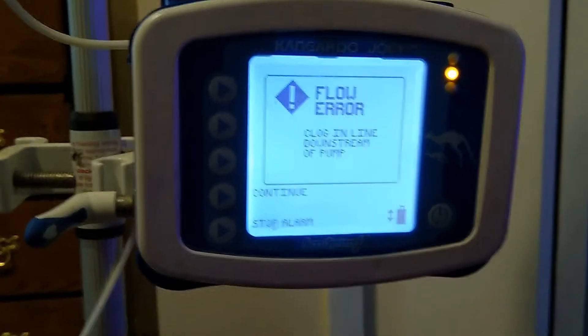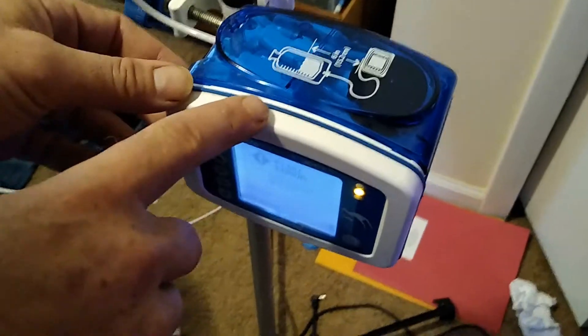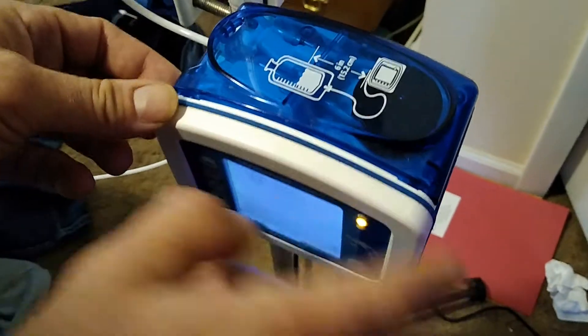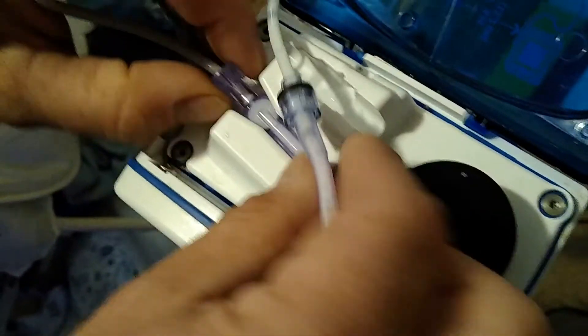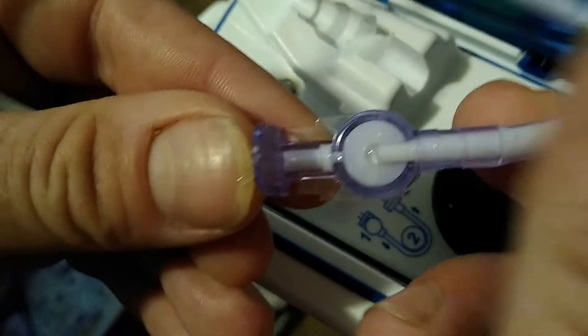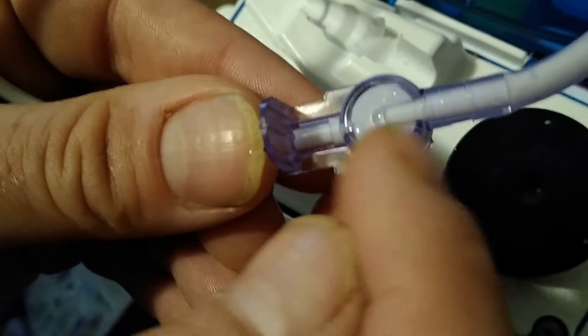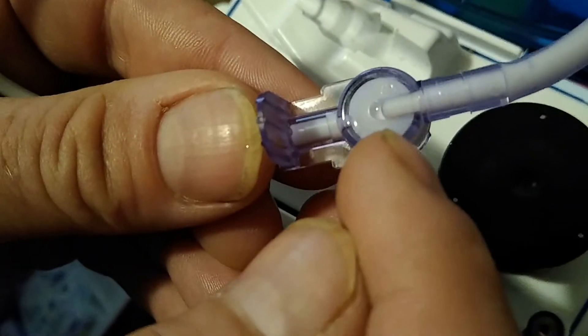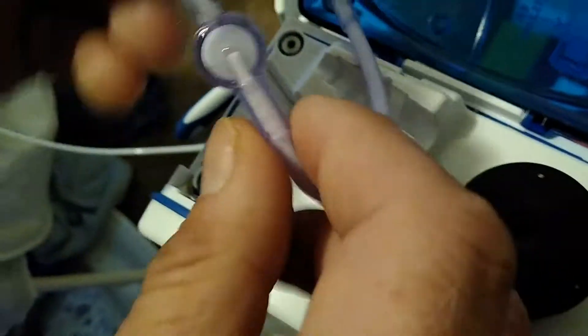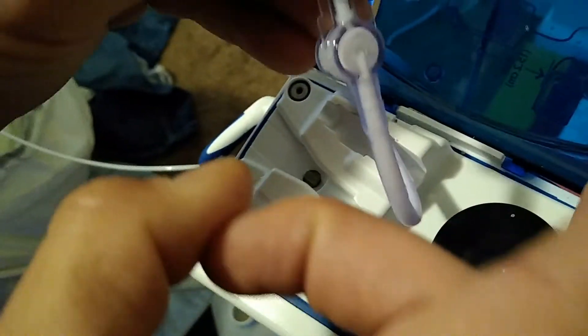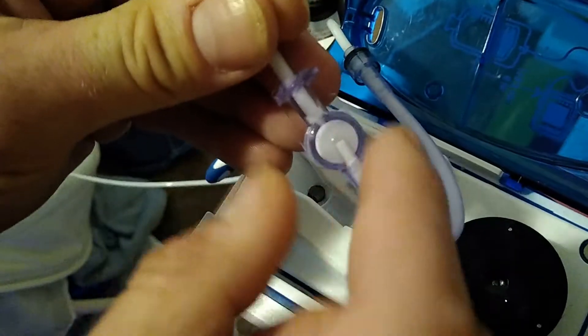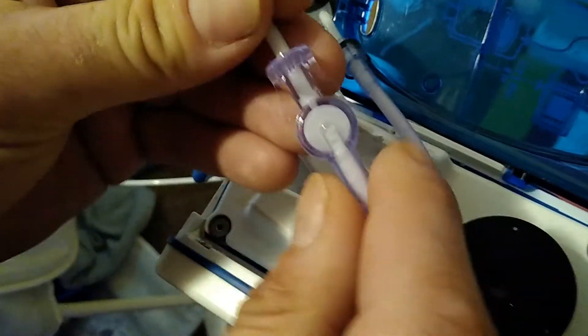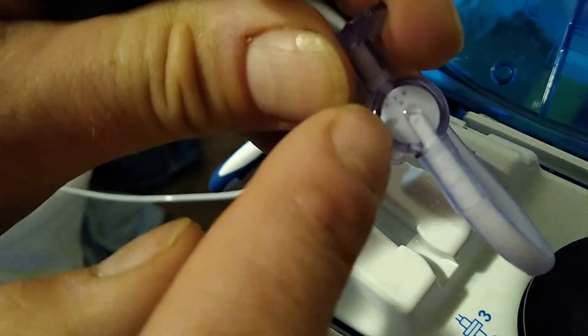So on the top you're going to lift this up and I'm going to show you what the actual issue is. I'm hoping it will come up on camera. This is filled with basically foam. So basically all you have to do is kind of tap it. You see how there's a bubble forming? You see all these little bubbles, kind of like a syringe? You see there's like foam stuck in here.